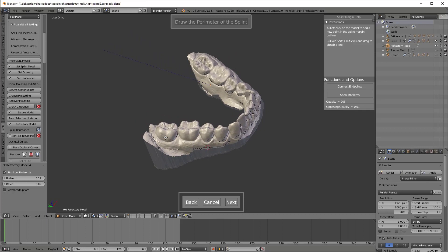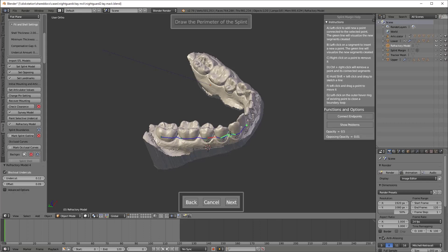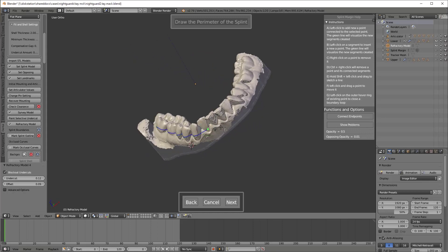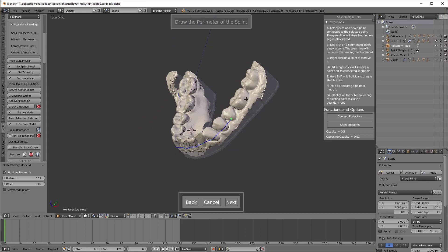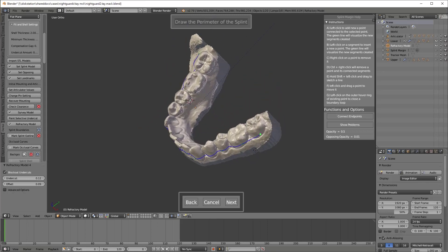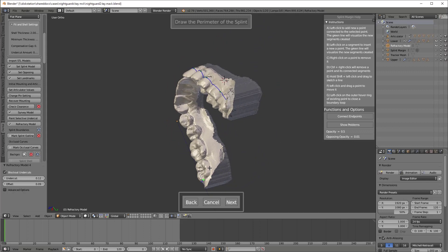I teach people and my team members to do this one tooth at a time. And here I got a little bit sidetracked. You know what it was? I was in blue sky plan mentality here. And so I started to hold down shift. You do not need to hold down shift while you're clicking with D3 splint. You just need to click just as you would with clinics or medisplint or any of the other ones. But in blue sky plan when you're doing a surgical guide you hold down control or shift or something. One of the modifier keys to make your surgical guide outline. I think that's why I was doing that.